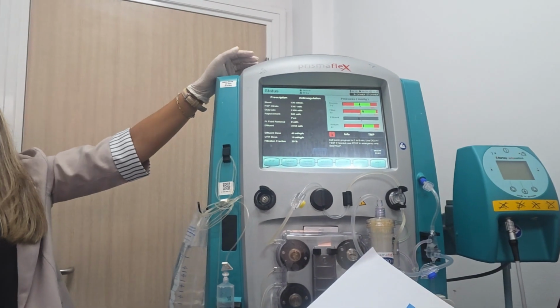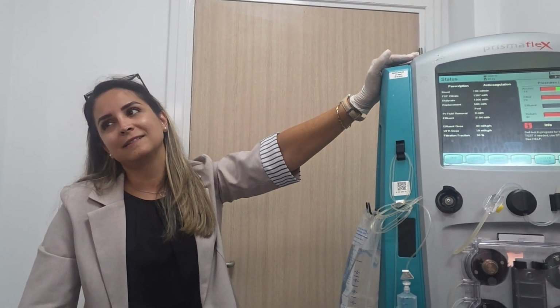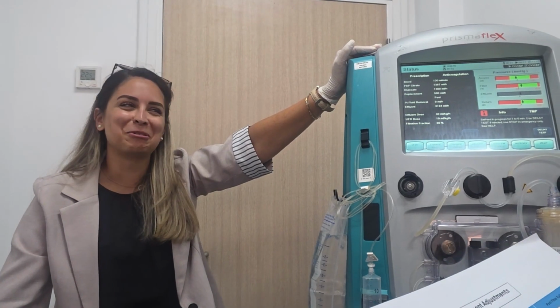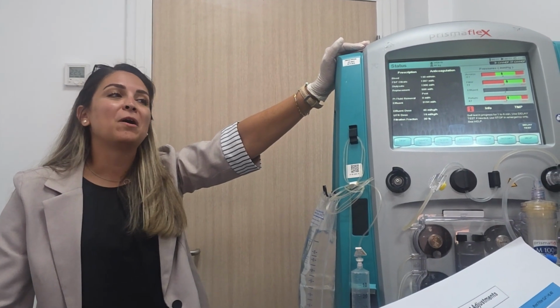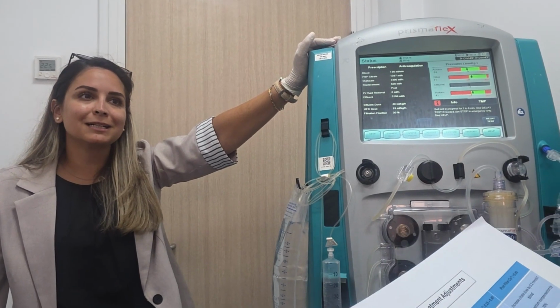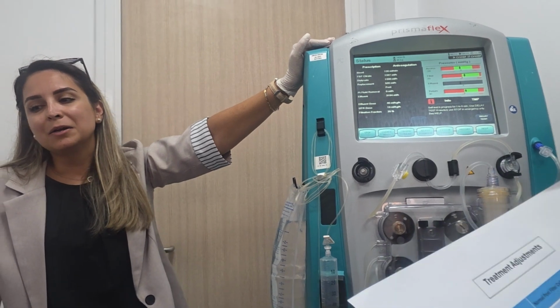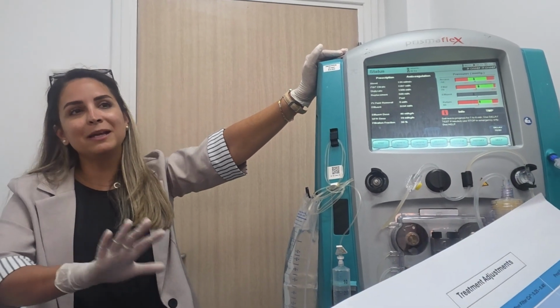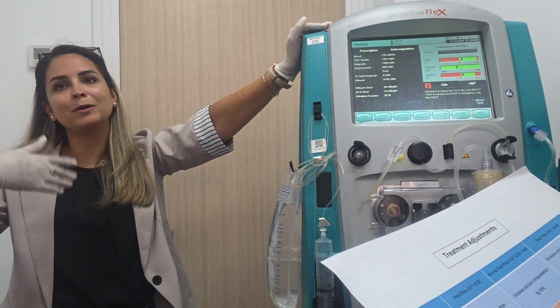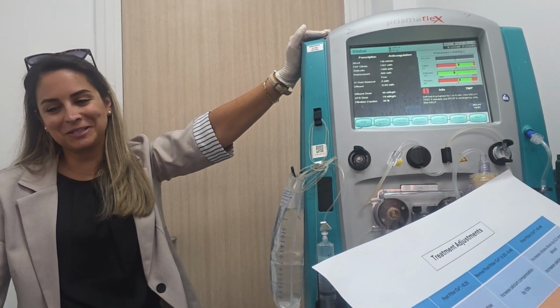Look, previously in the 24 hours protocol, they were telling us to check it after 2 hours, right? No, I said 4 hours if there is no change. But if we did some changes, we need to check after 2 hours. At the beginning we will keep it like this. Maybe later, once you find everything is fine and normal, you can repeat it every 4 hours.